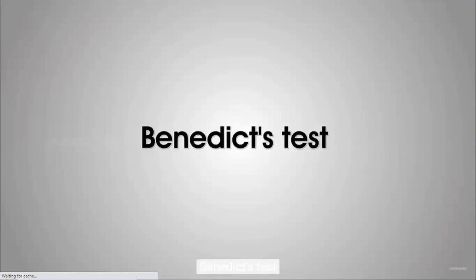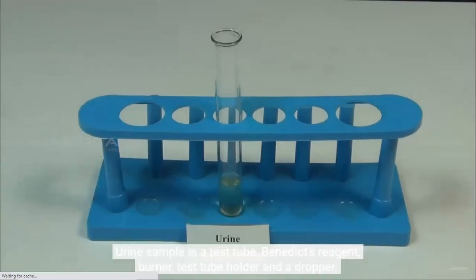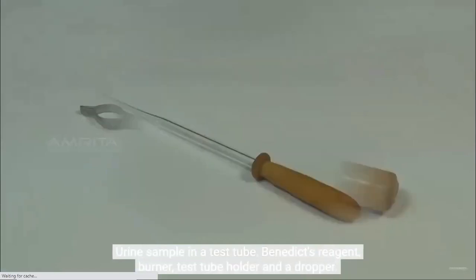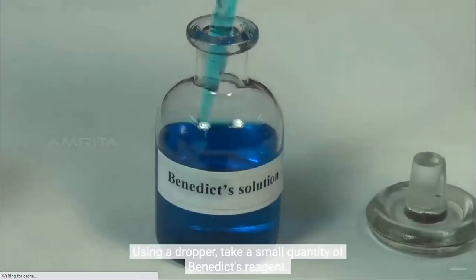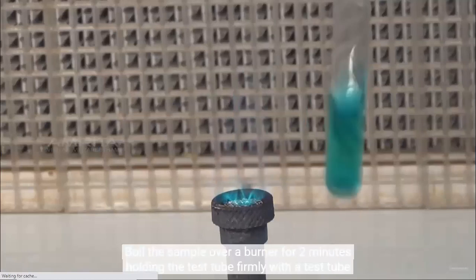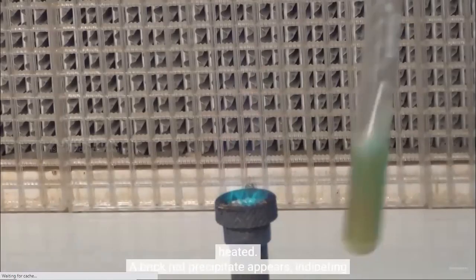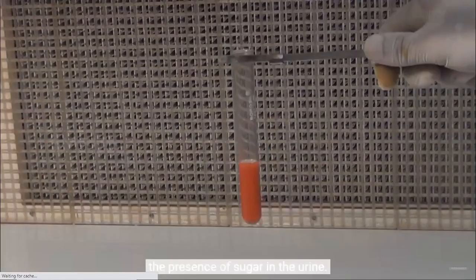Benedict's test. Materials required: urine sample in a test tube, Benedict's reagent, burner, test tube holder, and a dropper. Procedure: using a dropper, take a small quantity of Benedict's reagent. Now, add the reagent to the test tube containing urine sample. Boil the sample over a burner for 2 minutes, holding the test tube firmly with the test tube holder. Keep shaking the test tube as it is being heated. A brick red precipitate appears, indicating the presence of sugar in the urine.